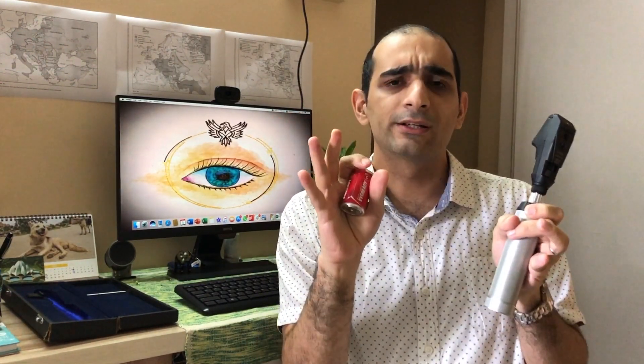These batteries are also available in the smallest shops deep inside rural areas. But if you envision yourself working in a clinic where abundant electricity is available, you can choose models with battery packs and chargers. There are some manufacturers that have models with dual battery systems.